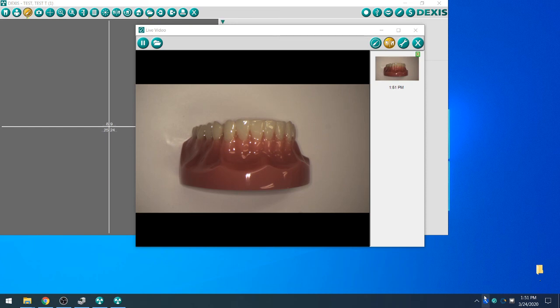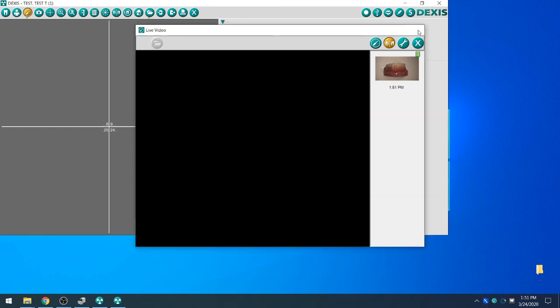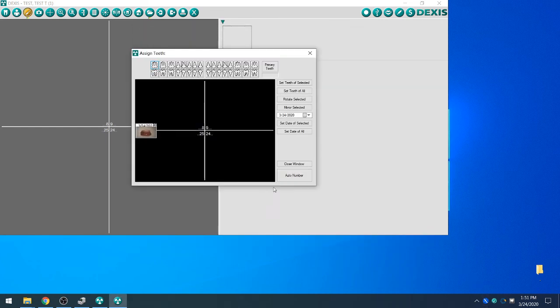Now that we've tested both the Lume and the capture buttons are working, we can close out of the live video view and import our images into DEXIS.